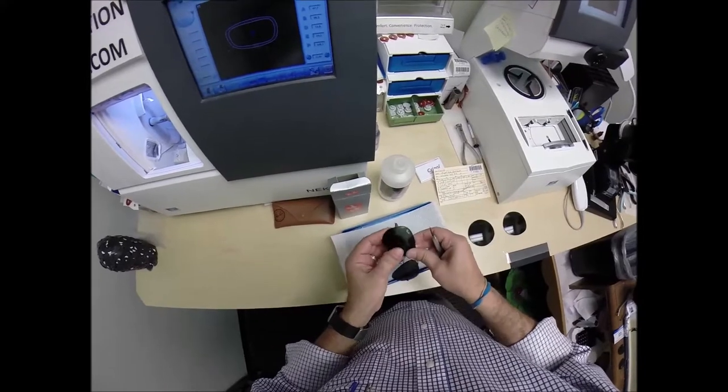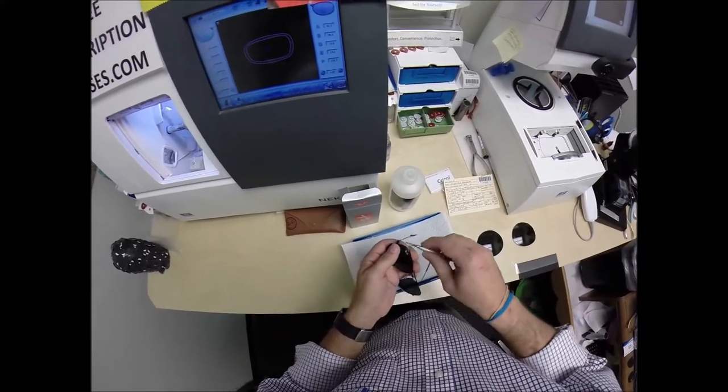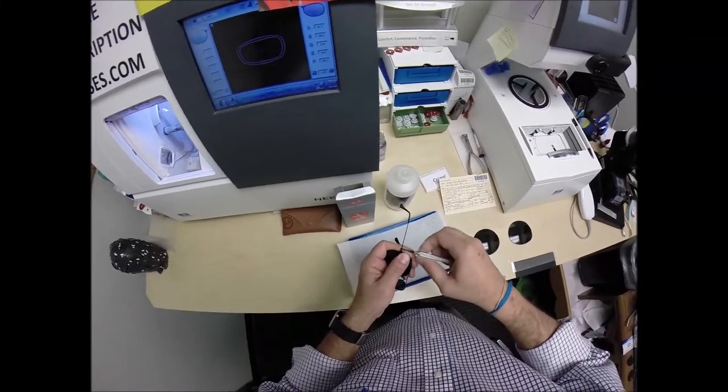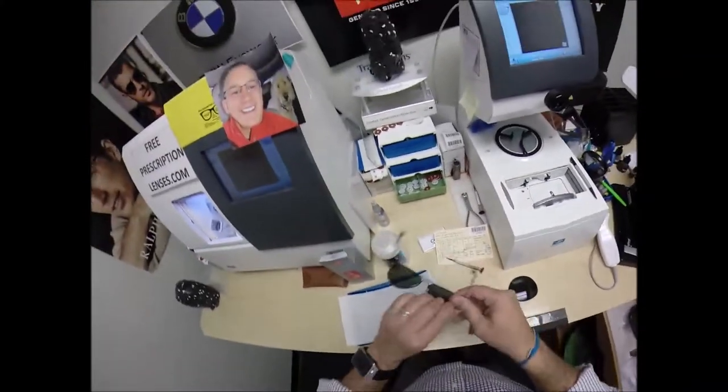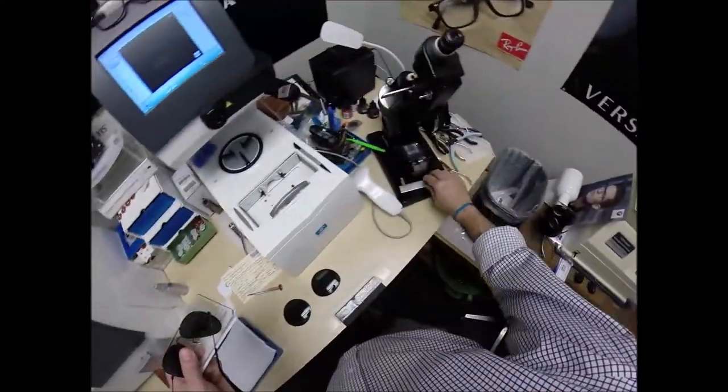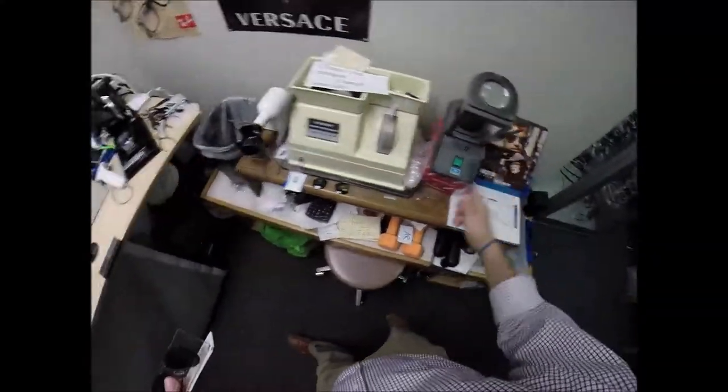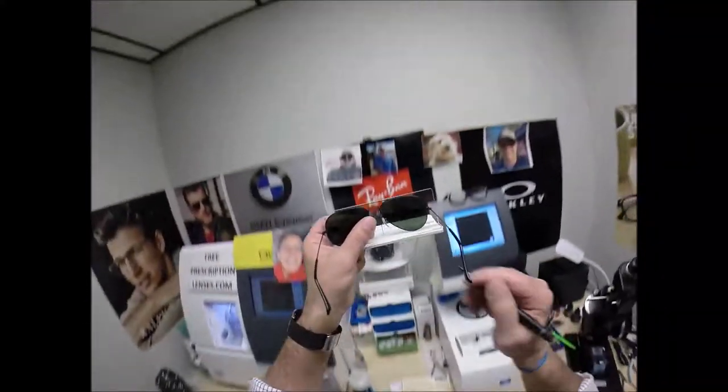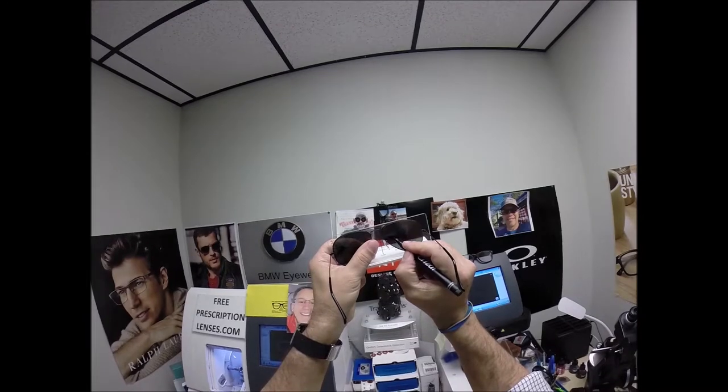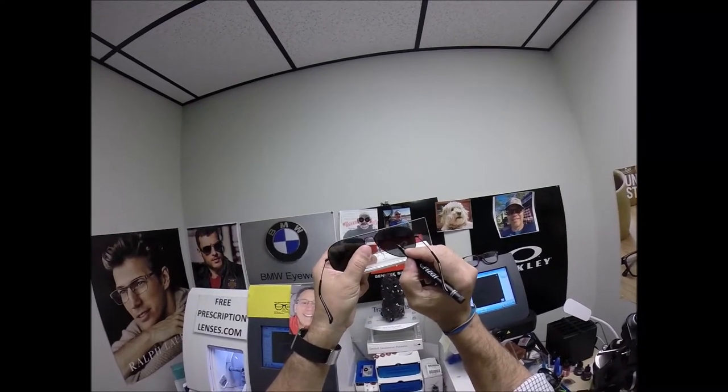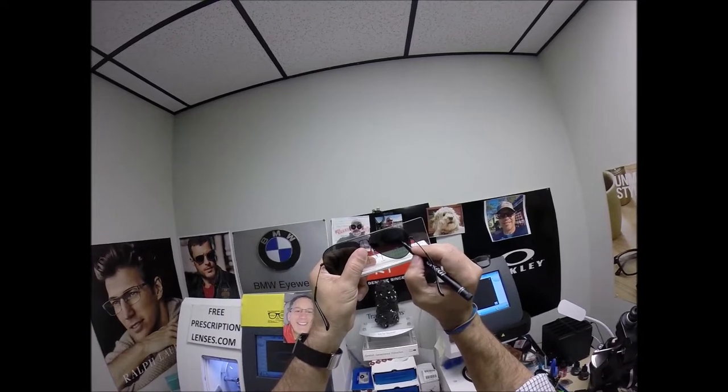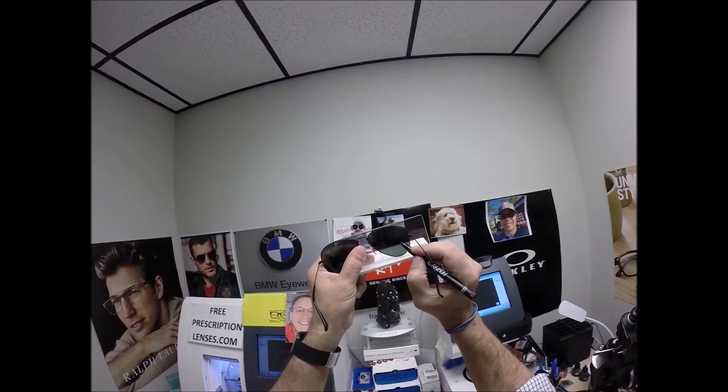I know in advance this frame can be problematic, so I'm going to do something with the lens still in there. I'm going to put two dots on the lenses, because I may have to trace the lens and not the frame. I'm going to put two dots on here. As I tilt my head up, I'm wearing a progressive lens also. I'm going to have to raise my head up in order to see clearly at this range, at this distance.